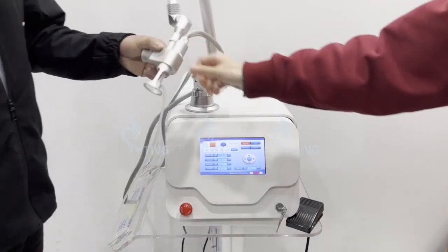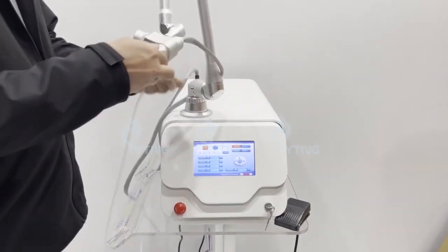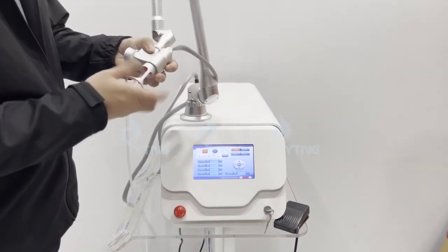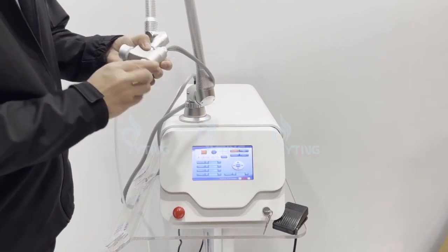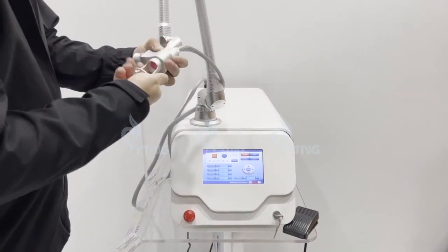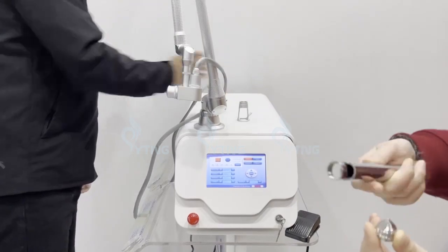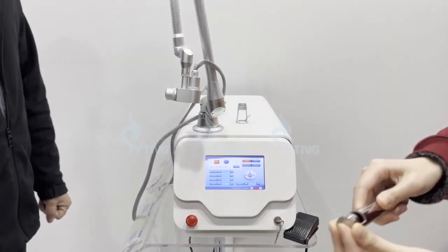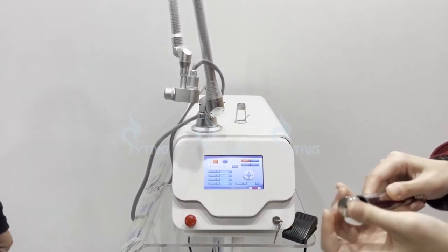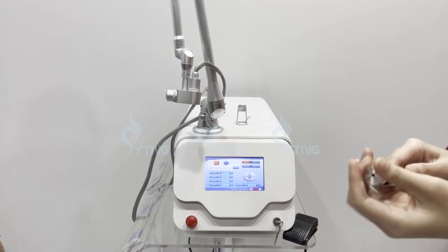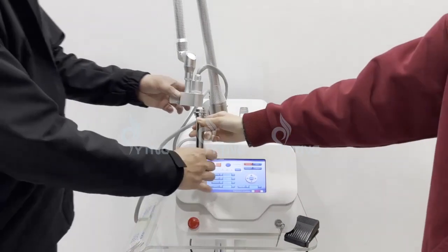Firstly, we change the working head. Use this working head. Install this top. Then we connect it here.